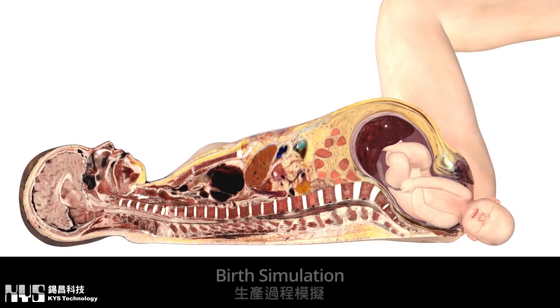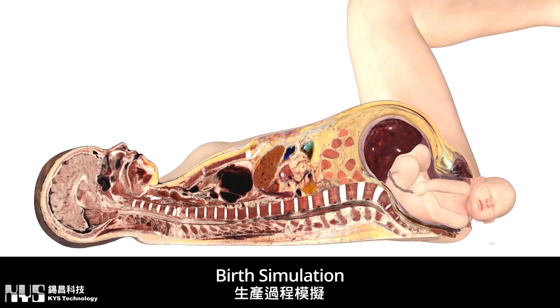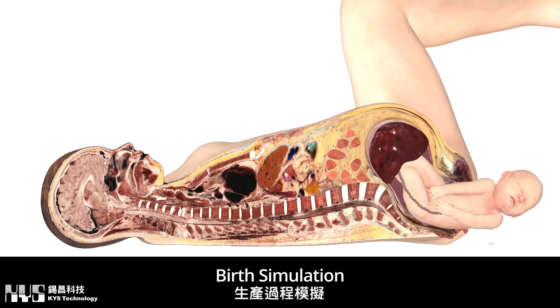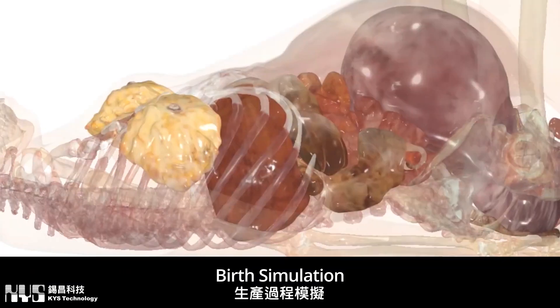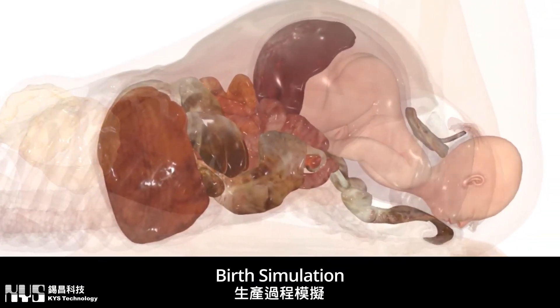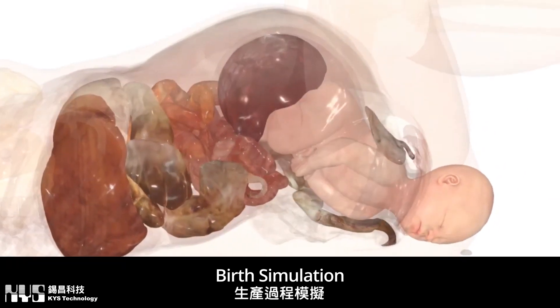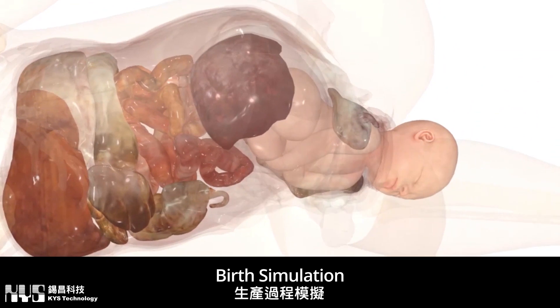Students and professionals can immerse themselves in the first fully interactive 3D birth simulation featuring real human anatomy brought to life. With Table 10's birth simulation, learners can visualize the anatomical transformation taking place inside a pregnant body during the different stages of labor.